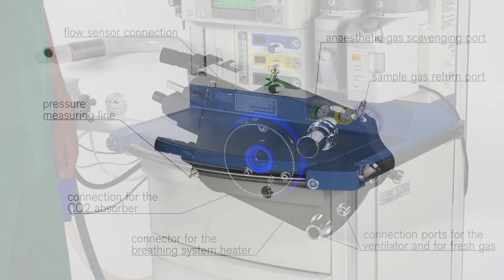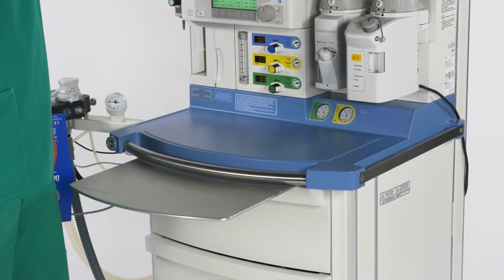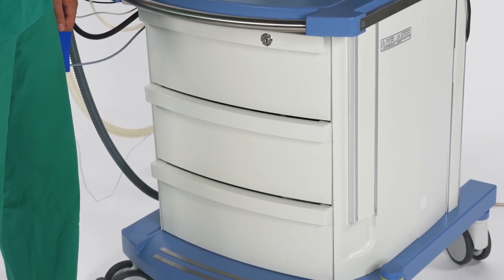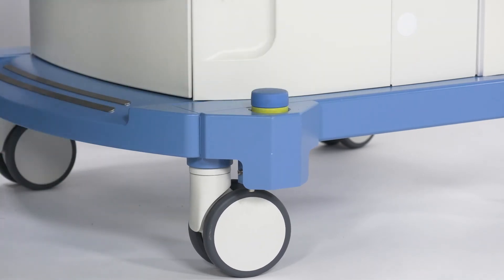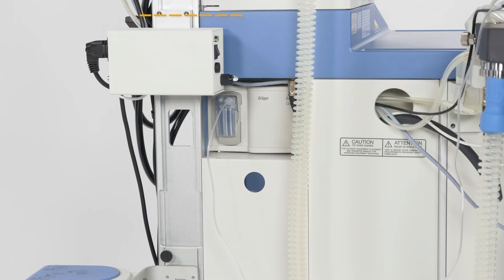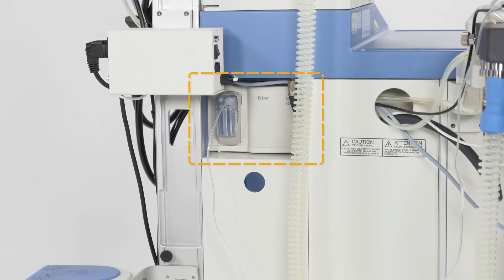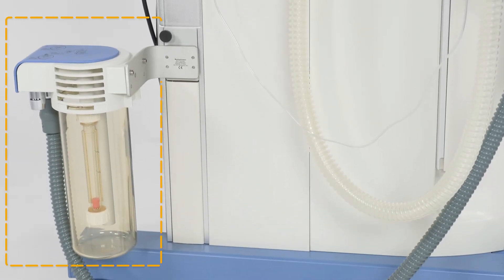In the base unit of the Fabius GS Premium, you can find an optional pull-out tray. The Fabius GS Premium is equipped with three spacious drawers for storage. The central brake of the Fabius GS Premium accounts for easy and safe positioning. Turning the Fabius GS Premium to the side, we can see the power supply for the breathing system heater, the integrated Draeger anaesthesia gas measurement module called SCIO4, and the anaesthetic gas scavenging system.